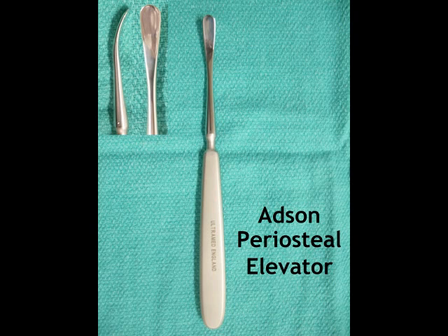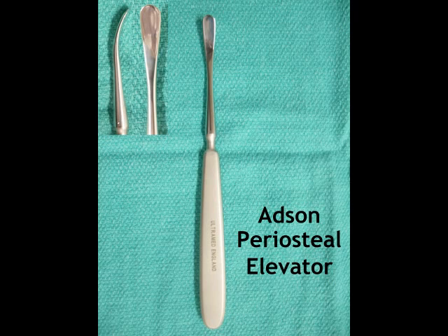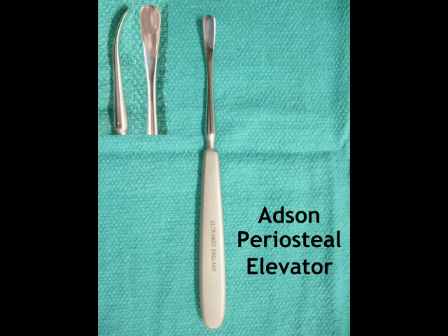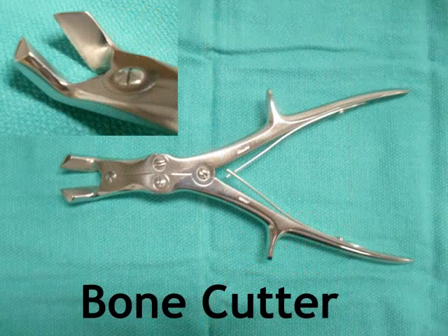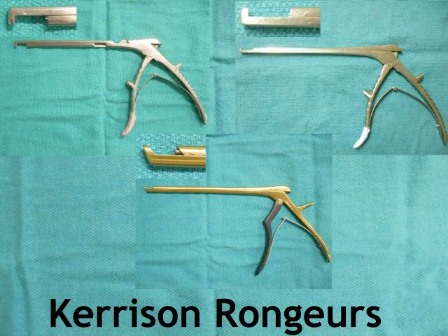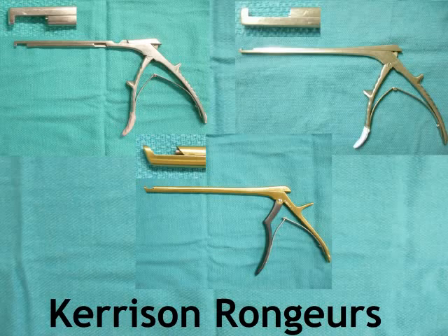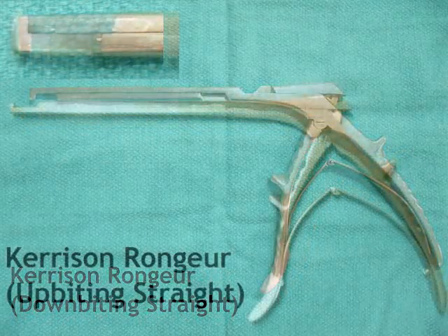Let's look at the things we use for cutting bone. Laurie, many surgeons ask for rongeurs as if it were one instrument. Could you tell us about the different rongeurs that we use? The initial one would be the bone cutter. This is the Leksell rongeur. There is a group of rongeurs that look like the letter K — they are the Kerrison rongeurs. They come in different shapes and sizes, such as the angled upbiting, the straight downbiting, and the straight upbiting.